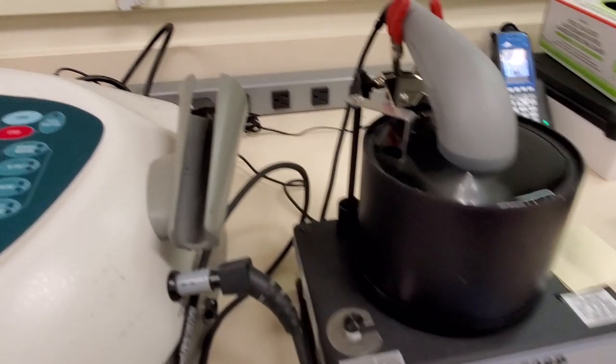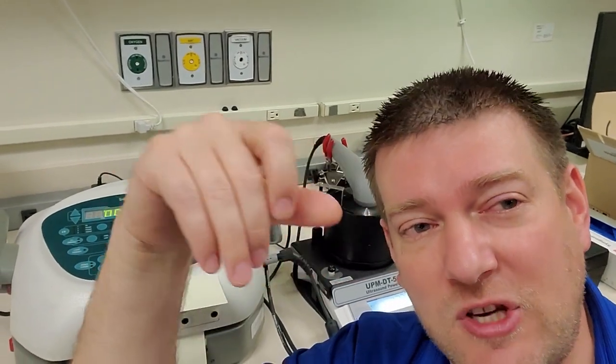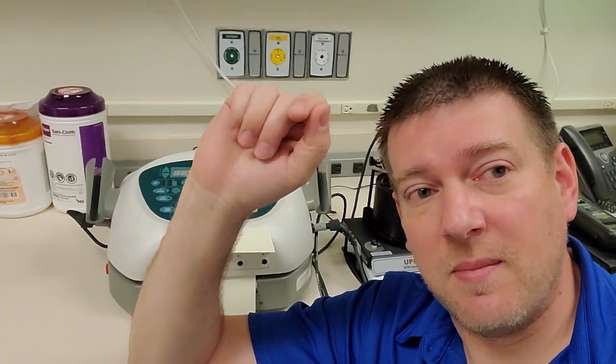So anyway, how is it that this unit got me in trouble? Well this guy right here, back when I was a junior level biomed - if you guys didn't know, the regulations for calibrating medical equipment have changed over the years. It used to be verbatim, whatever's in the manual is exactly what you have to do for your PM procedure, your calibration.